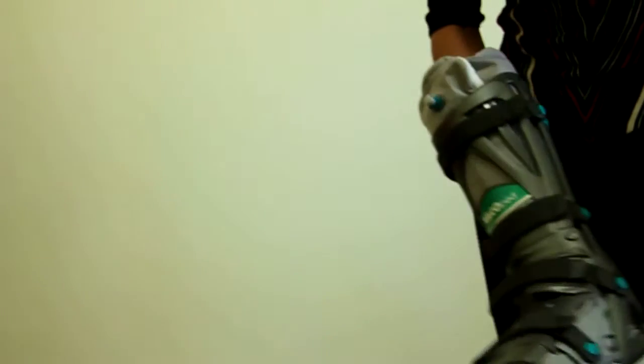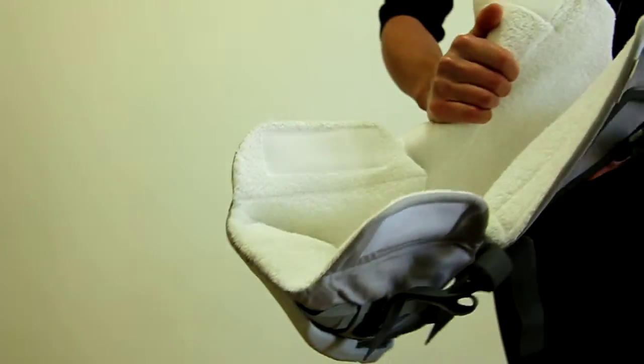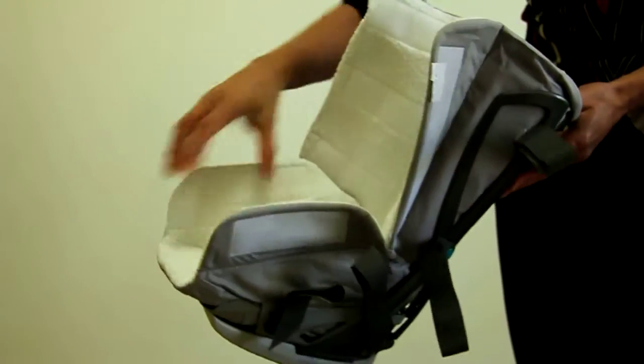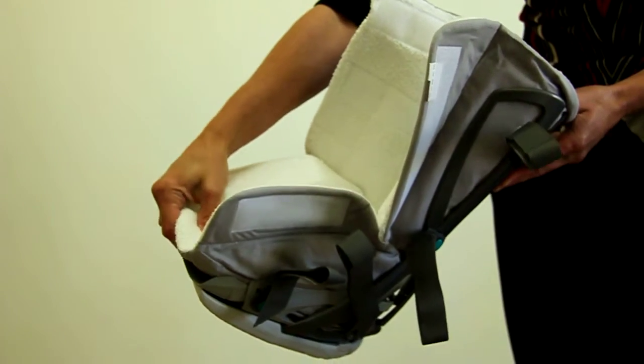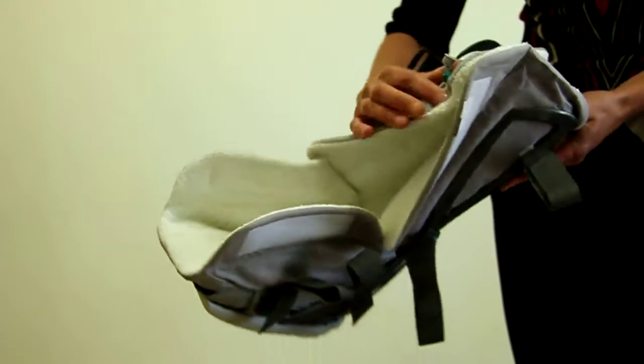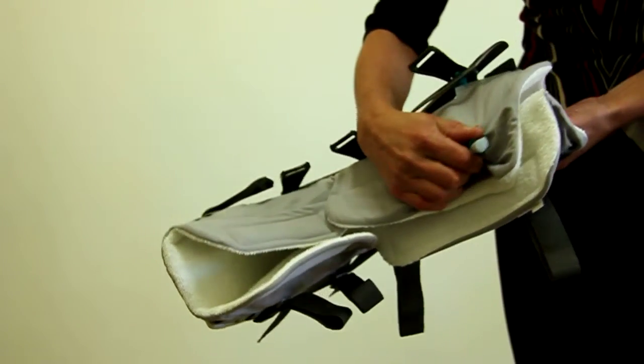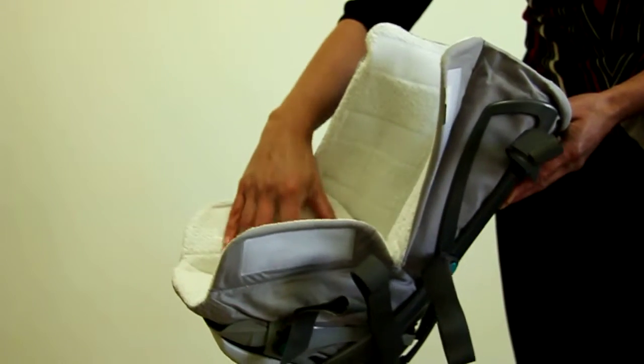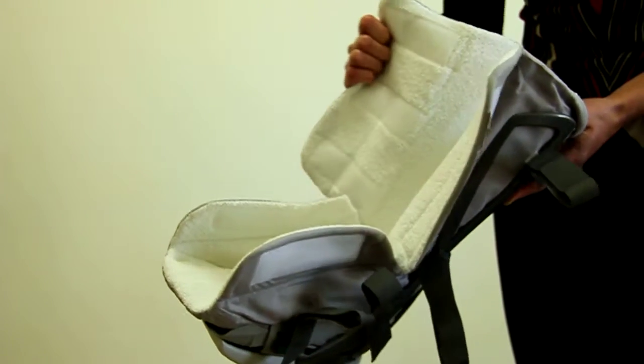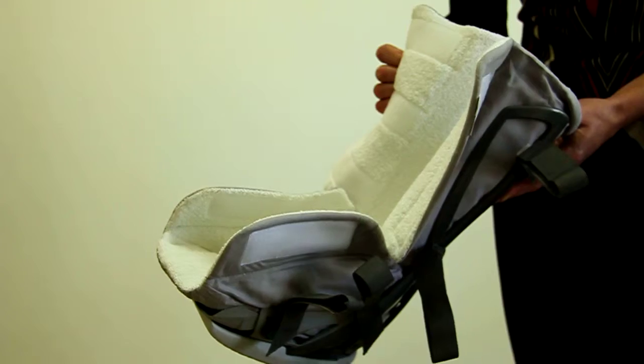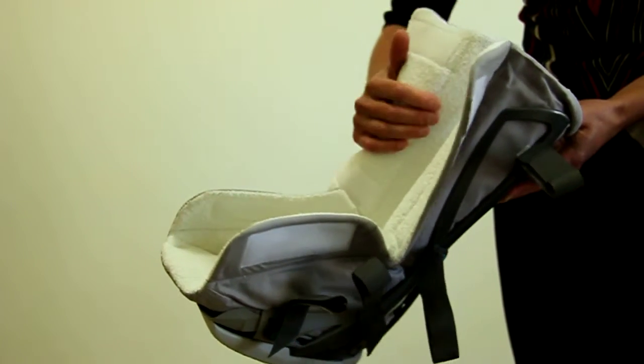The boot has several factors to it. It's lovely and comfortable because of the soft inlay which has foam beads in it, which you fit to the patient by using the vacuum pump seal to conform it to the patient's foot shape. There are two interchangeable liners so it's a very hygienic boot to wear.